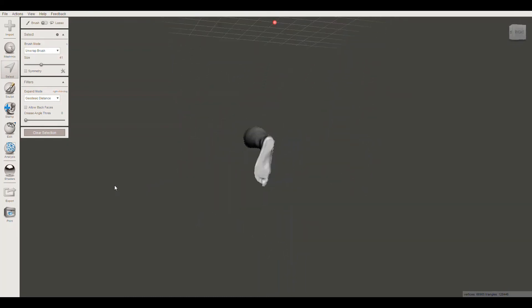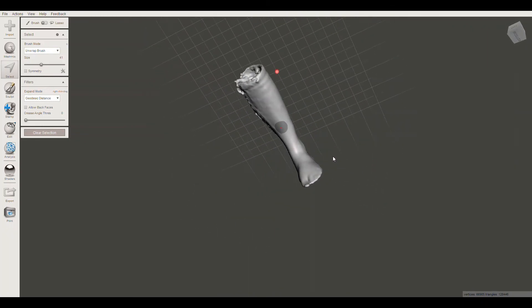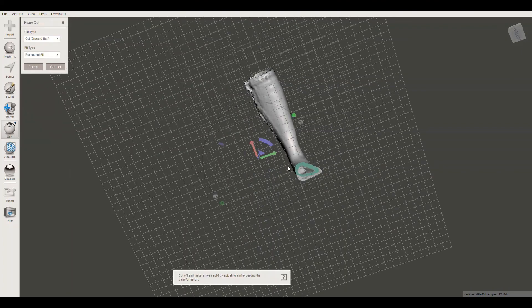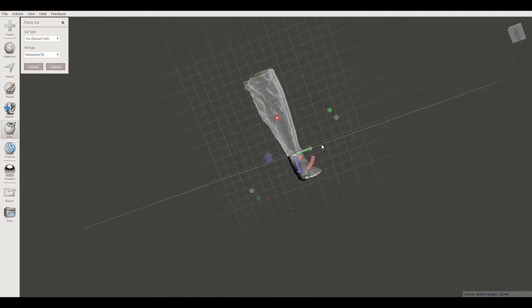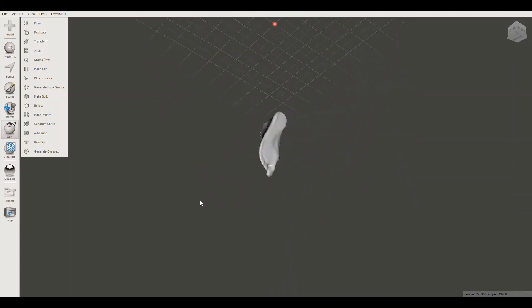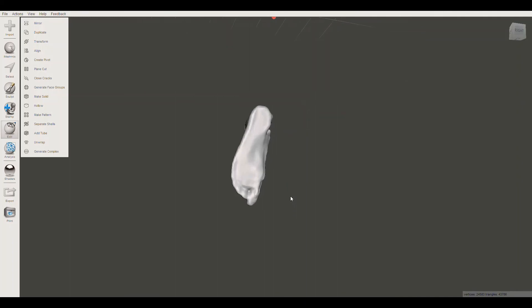As you can see, you can rotate the scan 360 degrees to view the patient's arch and get a good view of their foot and ankle alignment. To examine strictly the sole of the patient's foot, a plane cut can be done to remove from the base of the knee down to the ankle by going to Edit, selecting Plane Cut, and then selecting the desired location. This leaves just a small portion of the patient's foot, and this edited scan is then sent to AutoCAD for orthotic customization.